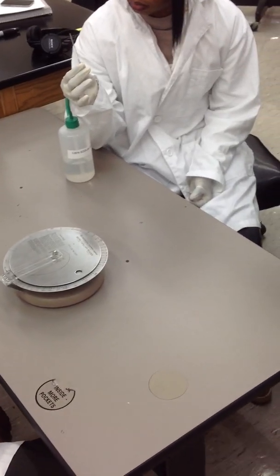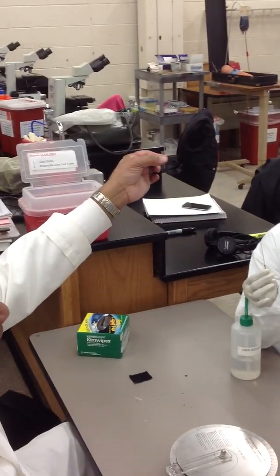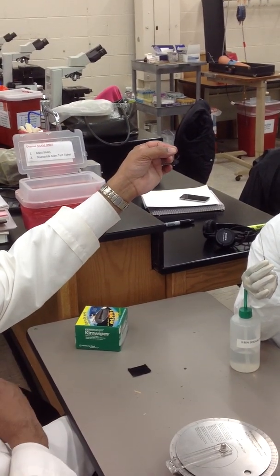So, that's where you have to start your measurement from. That is really low. And look at the bottom now. You can see where the plasma cell interface is. Everybody see that?